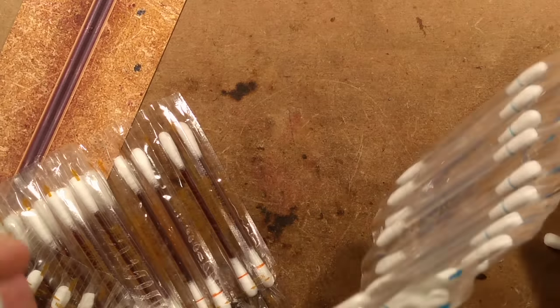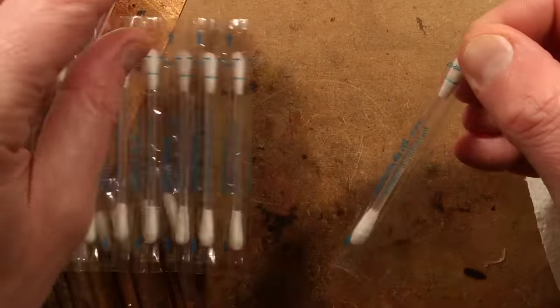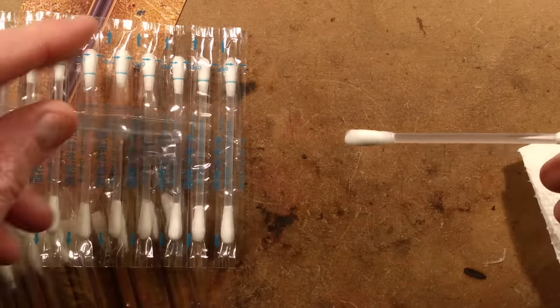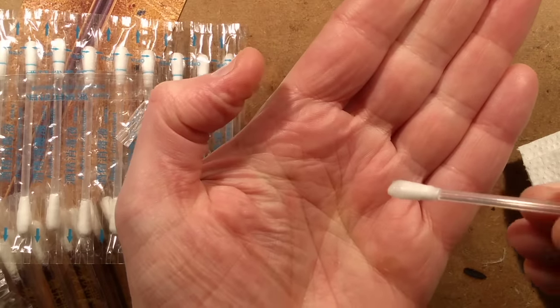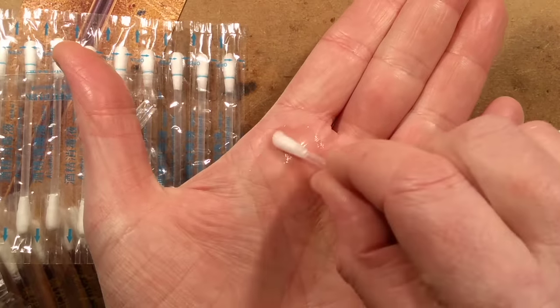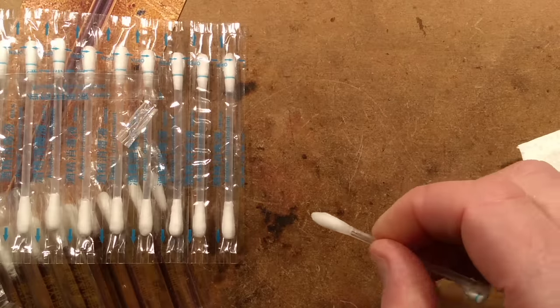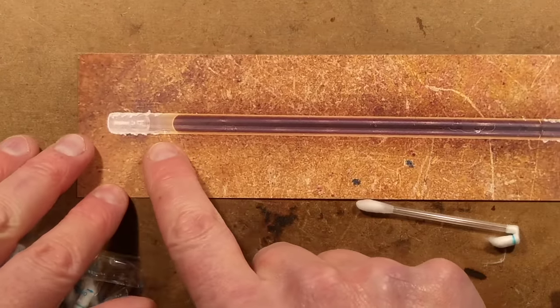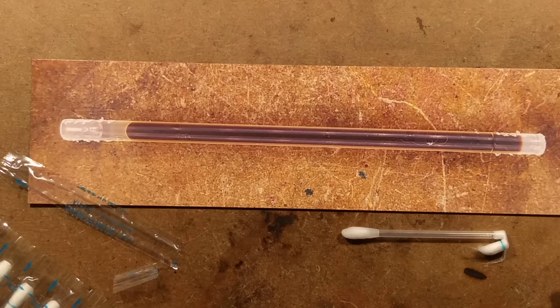That's more iodine all over the hands, but yeah, I could see these being quite useful. It seems a bit of a waste that you only get to use one end of the swab, and I'm not sure what you'd use the other end for. The alcohol ones are fundamentally the same — just peel it off, snap, wait for that slight time delay, and it goes through a lot faster because alcohol is lighter. Then you could clean circuit boards with it. They're not that expensive — a clever bit of design. I just wonder how long it took to design and research to get that plug absolutely perfect for this effect. Very neat, very clever little device.